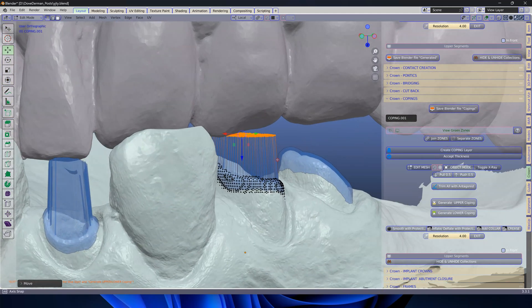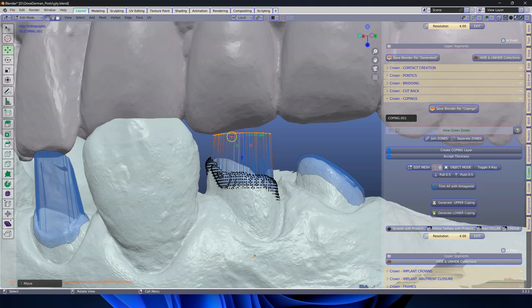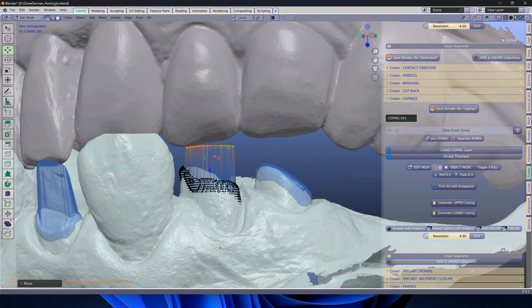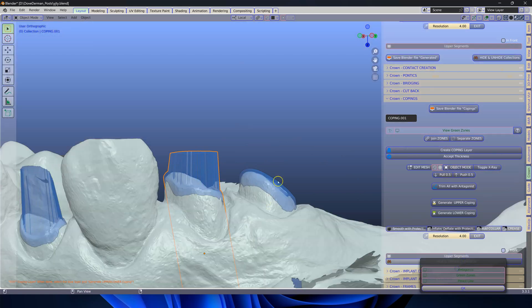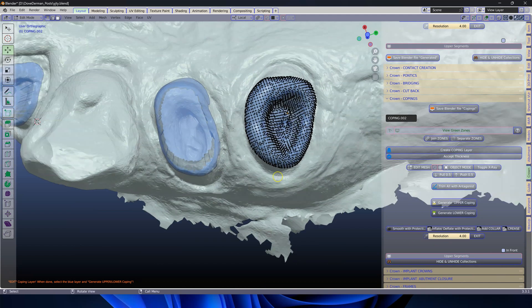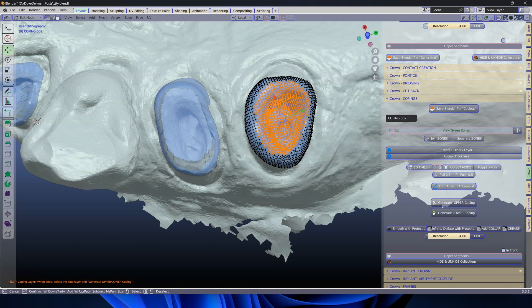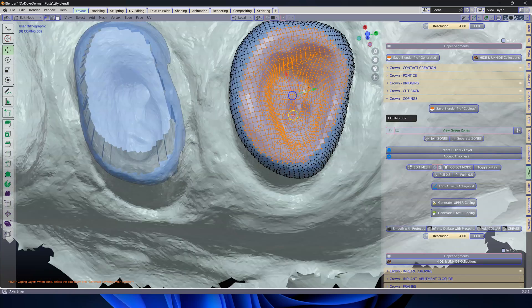I want this quite high up, but this is a little bit high — we're going to deal with that in a minute. I'm going to hide the antagonist and look at this. The C key — and I'm going to, with my left mouse button, brush a whole number of vertices. Make sure that you get the inside as well.